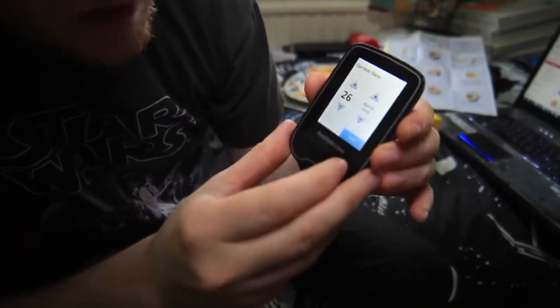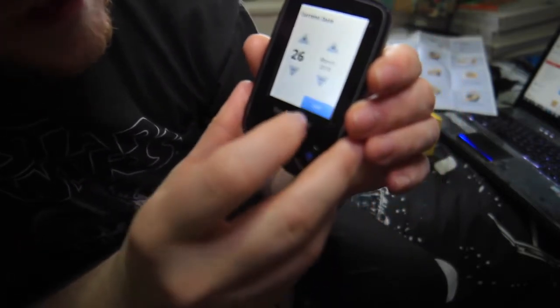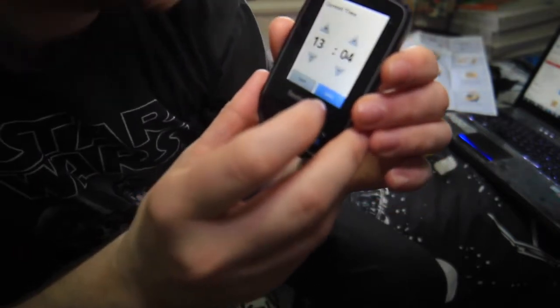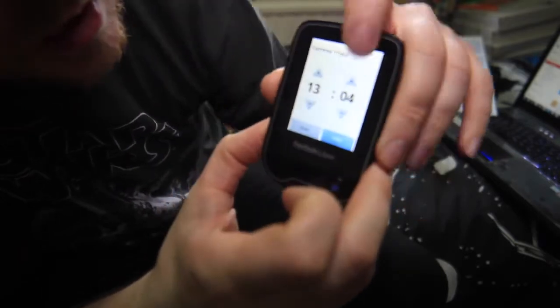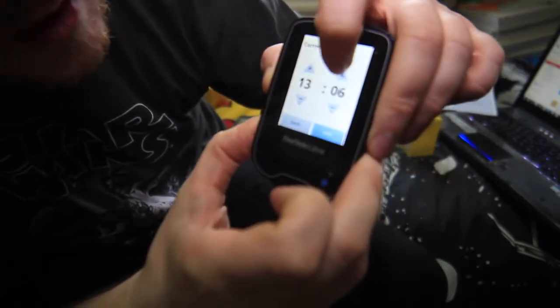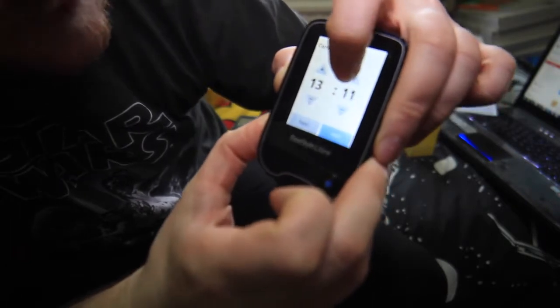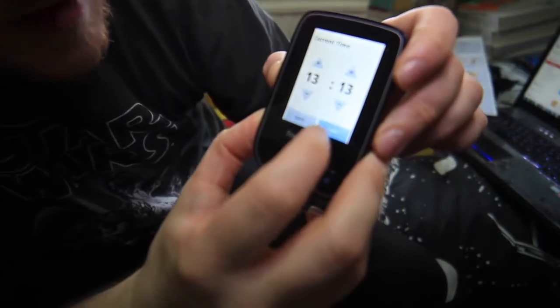I've never really done one of these before, so I'm just going to go next. Is that the current time? It's off by a few minutes. This is a touchscreen, as you can see, so I'm just going to pull that up to 13 and hit next.